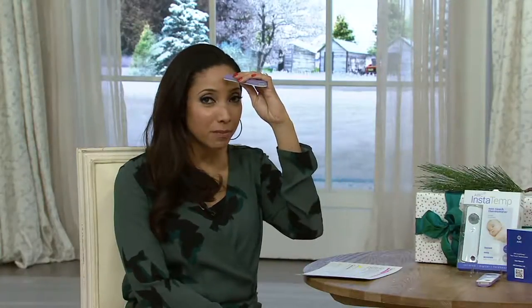You really have to keep an eye on their temperature, and so it just gave me peace of mind to be able to check it kind of obsessively throughout the night without waking and disturbing them. I would tiptoe into my son's room while he was sleeping and just put this right up against his forehead — 97.6. I'm in the green. I'm healthy.